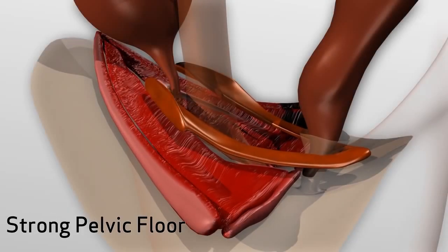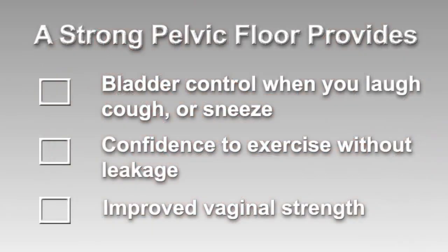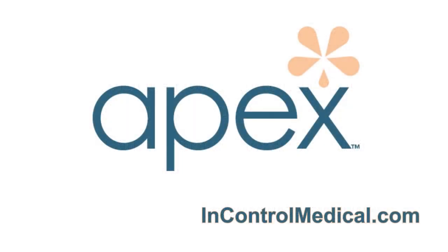Get a strong pelvic floor with Apex. A strong pelvic floor provides bladder control when you laugh, cough, or sneeze, confidence to exercise without leakage, and improved vaginal strength. Apex will strengthen your pelvic floor and eliminate the need for pads forever.